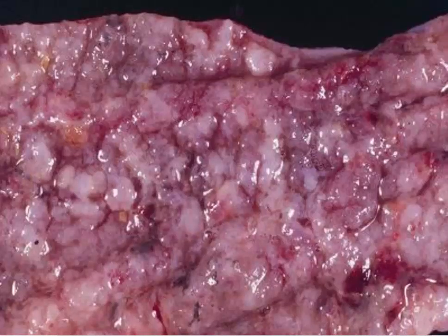Slide number 7 is tissue from a macaque. And I want you to give me 3 possible causes. Okay, time's up. That was from a macaque, and it's sort of difficult to tell where you are.